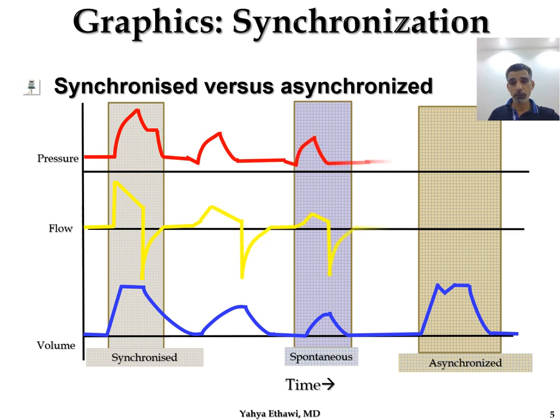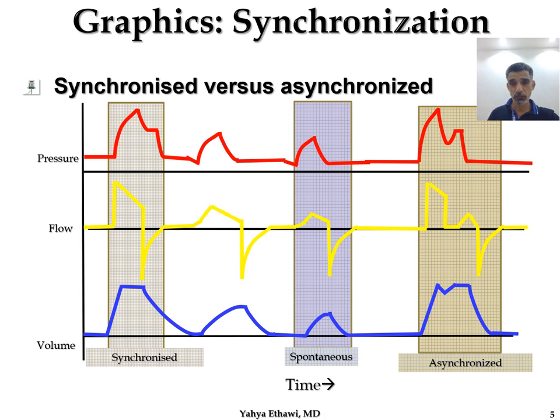The graphics tell you whether there is synchrony or not. In the first box, there is a synchronized breath between patient and ventilator. In the second, there is a spontaneous breath not provided by the machine — only the patient's effort. In the last, there is asynchrony, which is very clear from the pressure line because you have two peaks, and in the flow you have two inspiratory flows — which should never happen in a normally synchronized breath. You can see tidal volume achieved by the ventilator and then started by the patient, giving you two tidal volumes, confirming asynchrony.